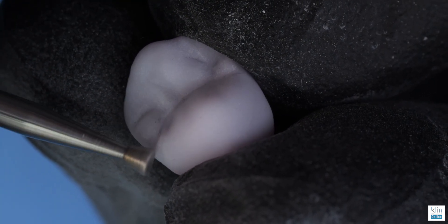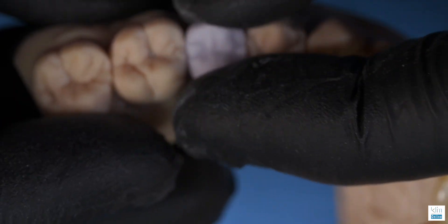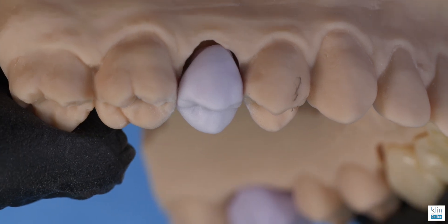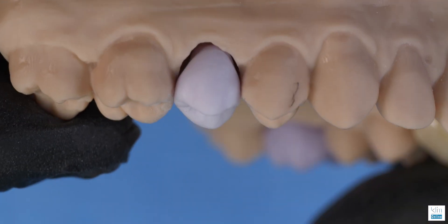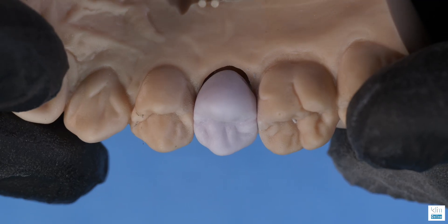It's starting to take shape now. Let's try it back on the model. And yeah, it's looking a lot better. It's fitting that occlusal morphology vibe, and that's really what we're looking for here. Looking at all angles.